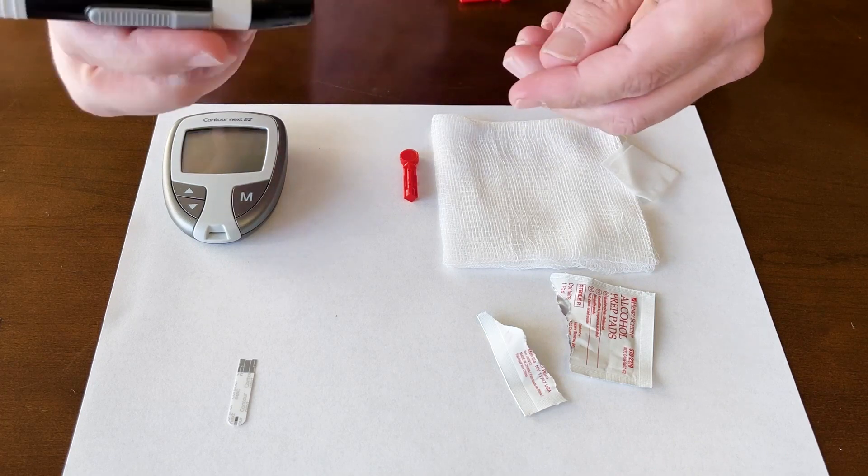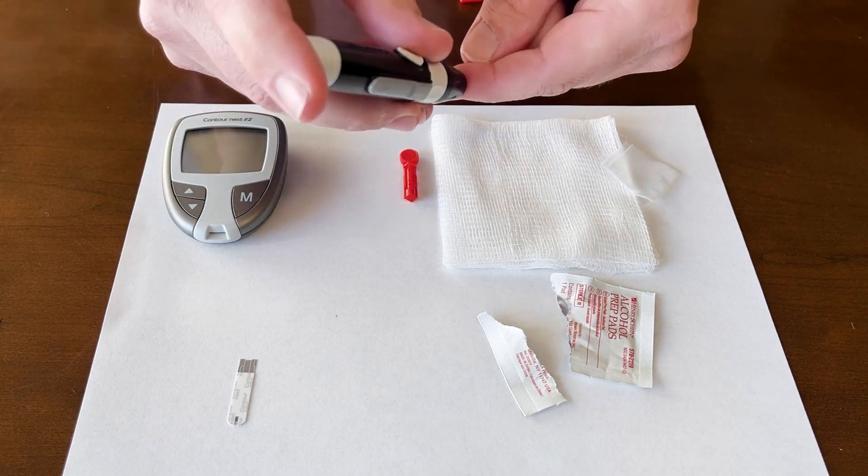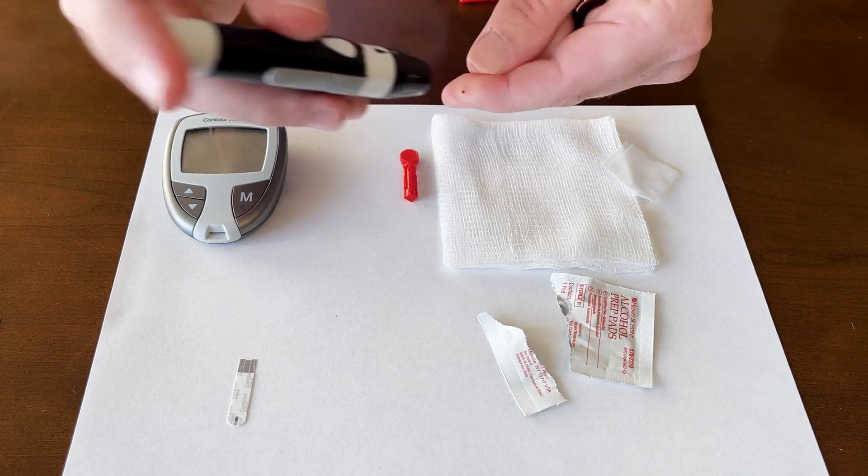Once it's evaporated, I've got my device. I'm going to stick the hole right onto my finger. Now you don't want to be shy. You want to push it down just a little bit. Hit the button.